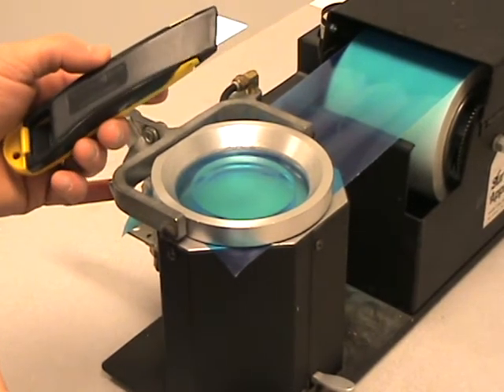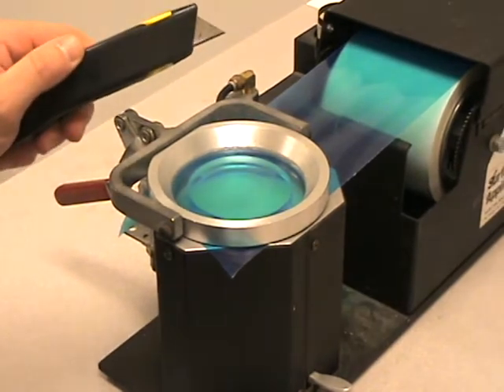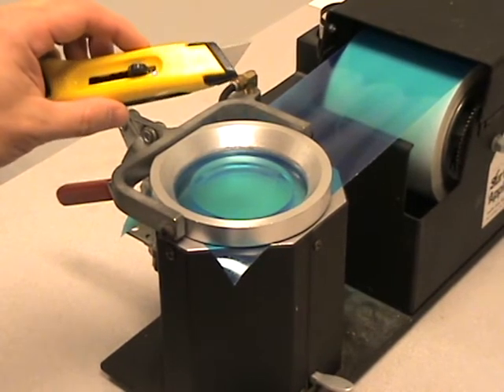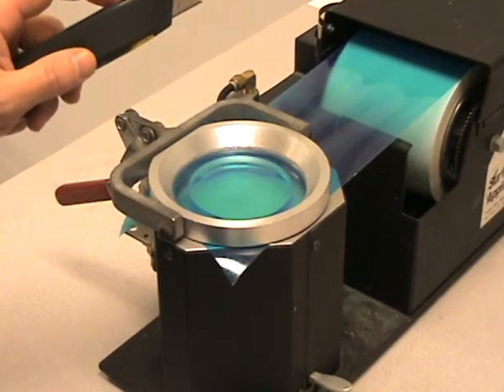We're going to use a razor blade for this discussion. Many labs use a heat knife, which creates a much cleaner edge around the edge of the lens, but at the same time can cause safety issues with associates burning themselves.